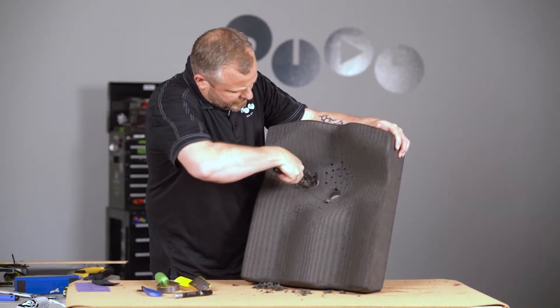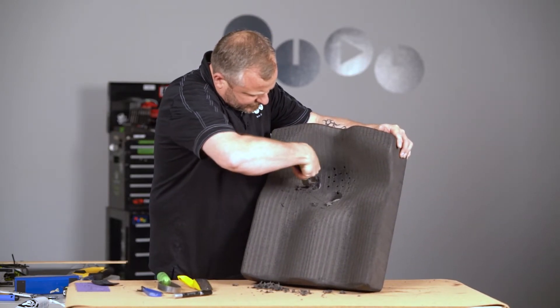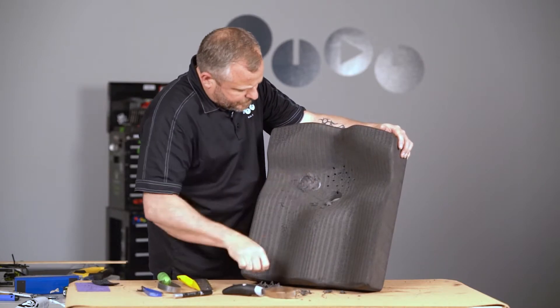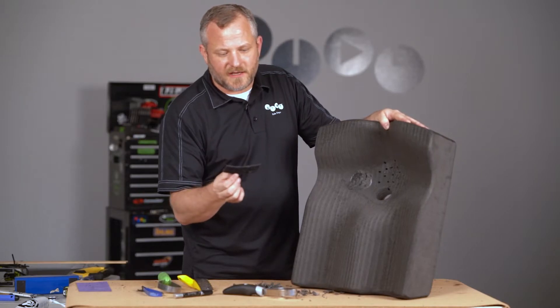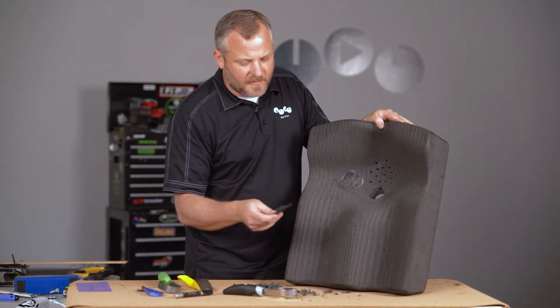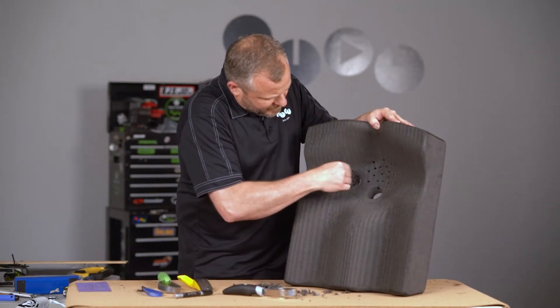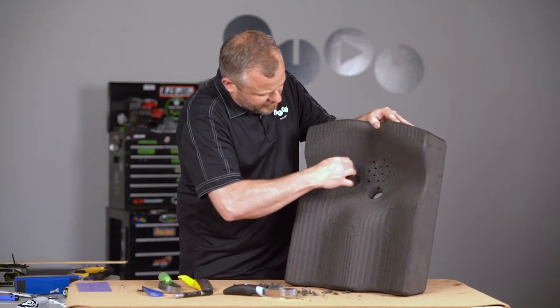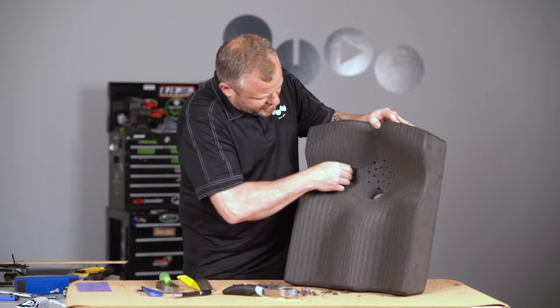Alright, I think I've probably gotten down about an entire inch. I'm going to come back with this double-sided hook velcro that we send with every cushion. Most of the time you don't end up using these, but you can save them and use them to help smooth out edges on your cushion. It works really well to fine-finesse those edges.